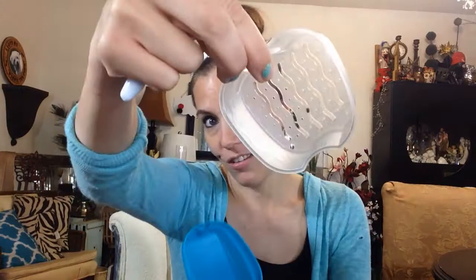I love it. If you have a retainer, Invisalign, mouth guard, whatever, then you should get yourself one of these — it works super super well.